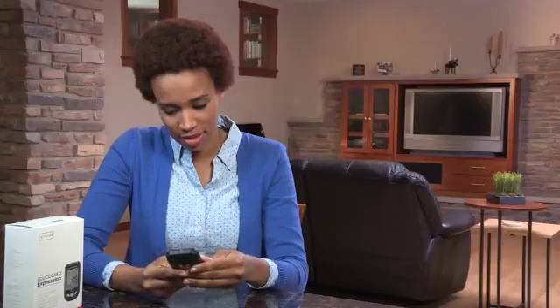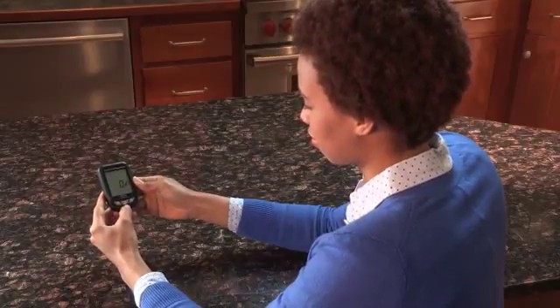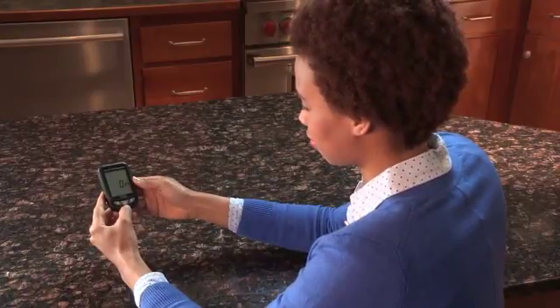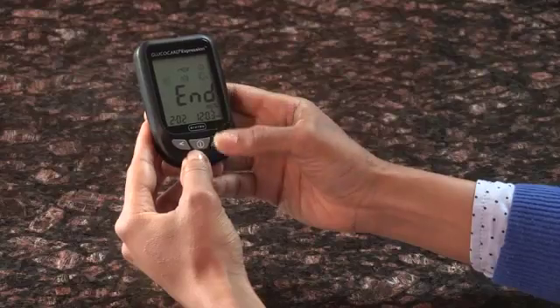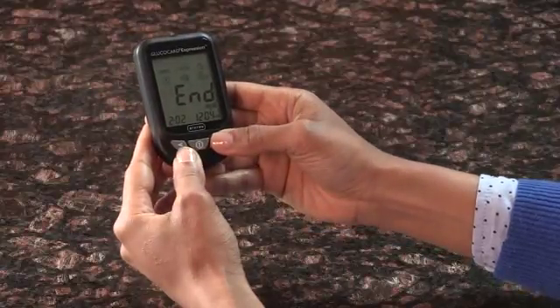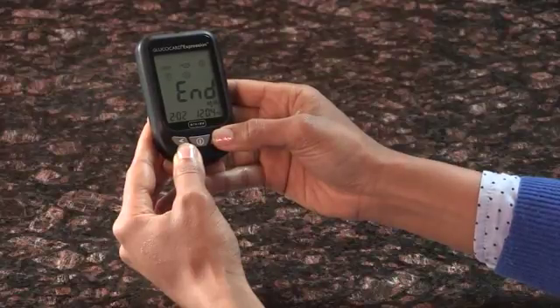The Setup screen of the Glucocard Expression Meter lets you take advantage of the Glucocard functions of this meter. To access the Setup screen, press and hold the Enter button to turn the meter on. Press the Enter button again to enter the Setup screen. From there, simply use the left and right arrows to navigate to the desired function icon and press Enter to enter the desired function. The meter will also announce each function when the voice feature is turned on.